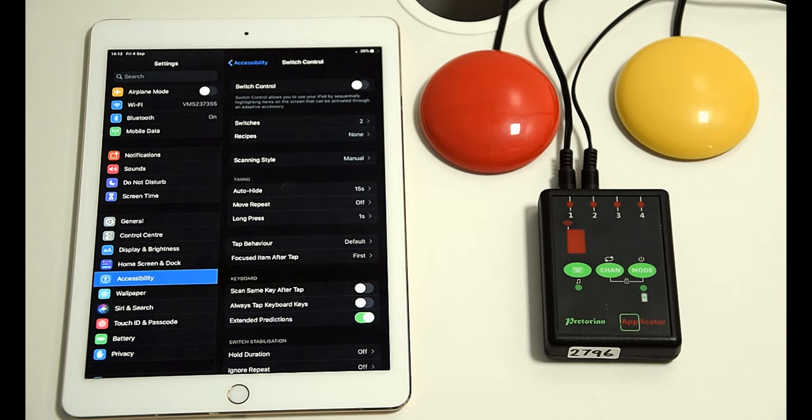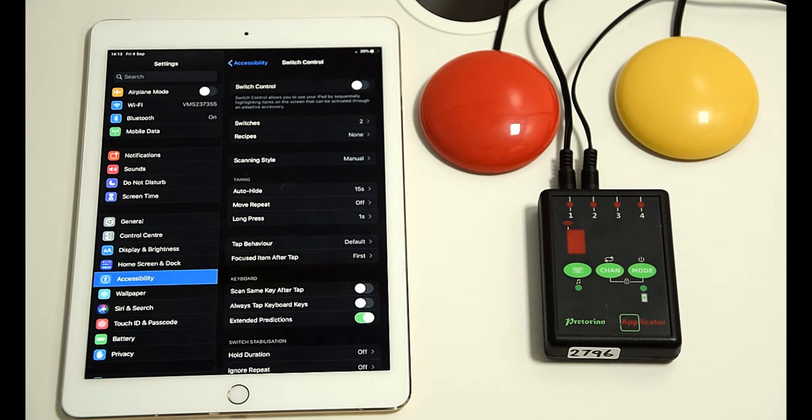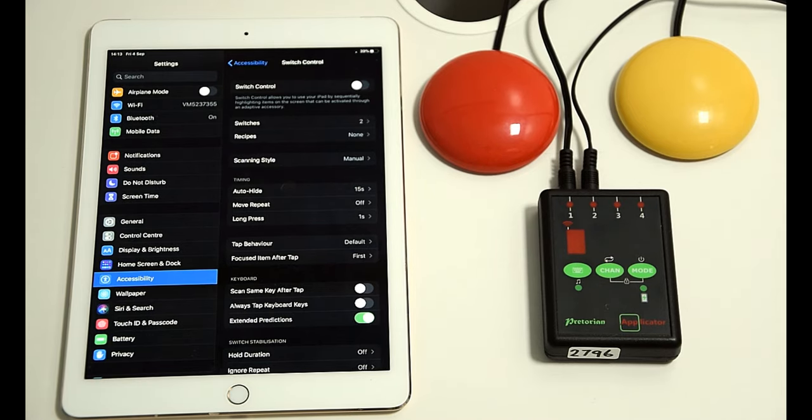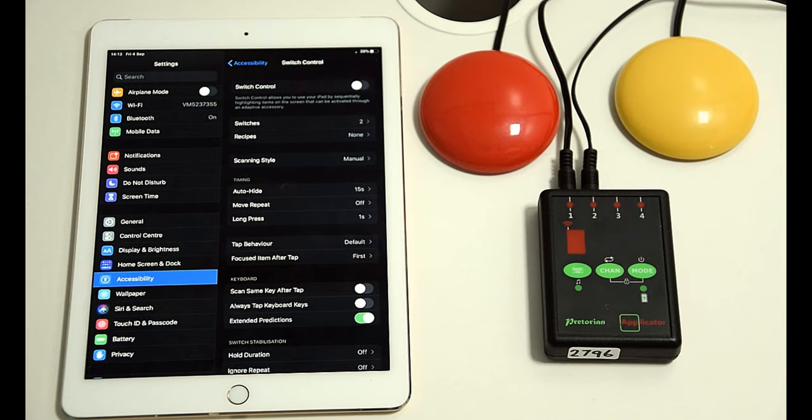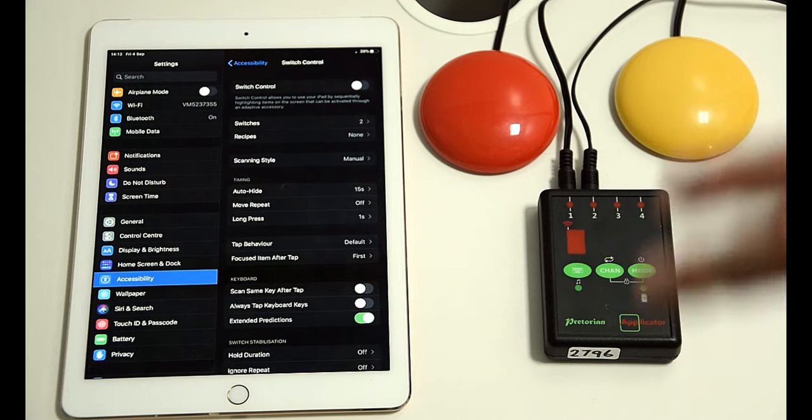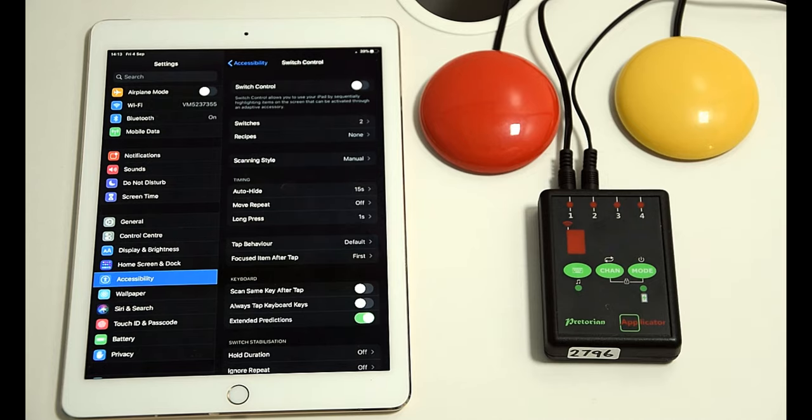However, for the sake of this video and perhaps if you're just, from an OT point of view, if you're just going to give this device with the switches to the person who is going to just simply be reading and you don't want them to do anything else, I'm just going to show you how to set up the switches to do only that action.